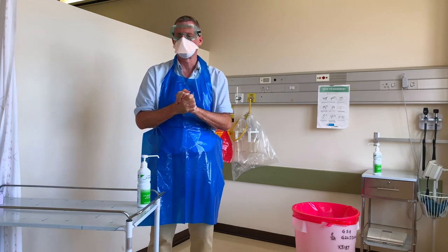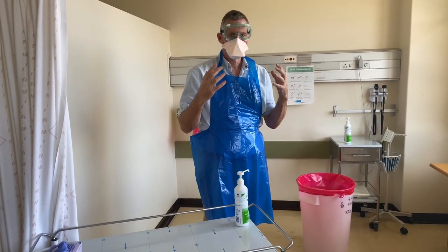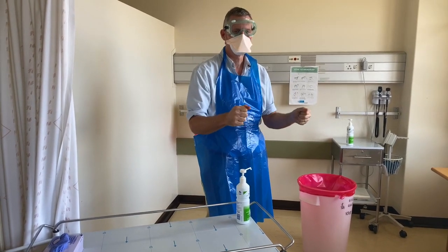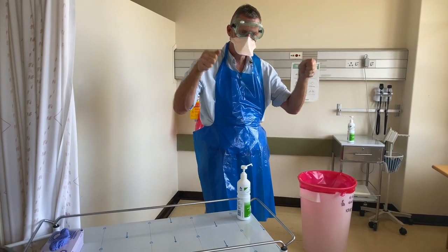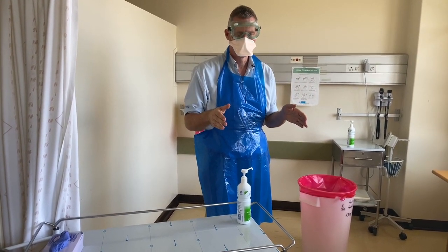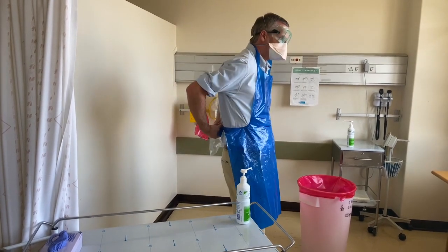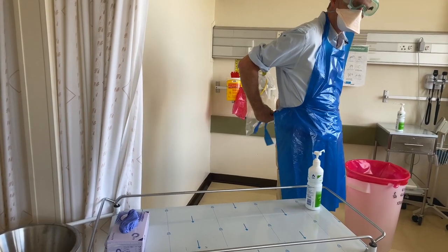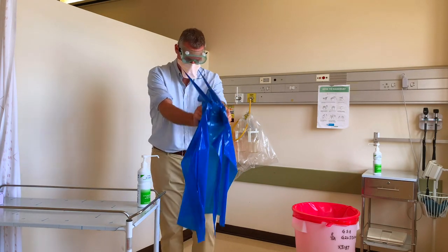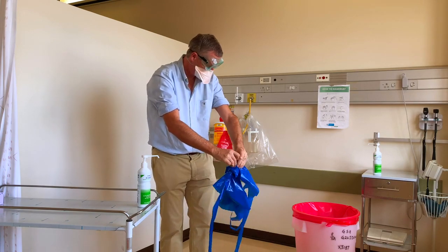The next piece of equipment I'm going to take off is the apron or gown. If you're wearing a face visor that comes down low and you have an apron that you cannot rip off, it's very difficult to get the apron over your head with a big visor on — in those circumstances the visor should come off first, then the apron. I'm going to undo the straps without touching the front of the apron, move it away from my body touching only the uncontaminated surface, pull it down and over my head, bring the surface up, and place it in the bin.